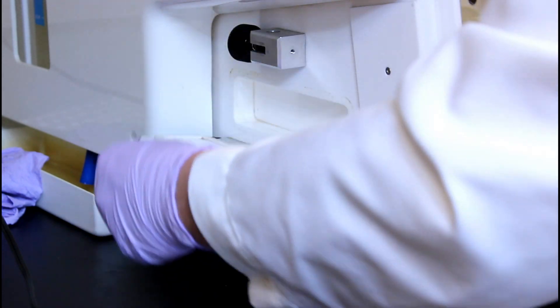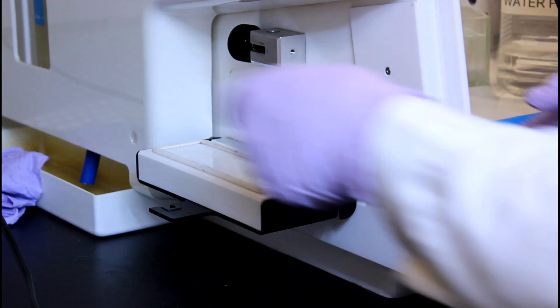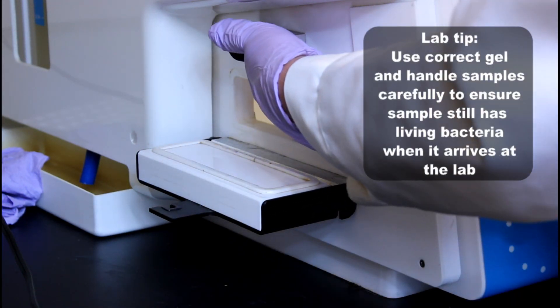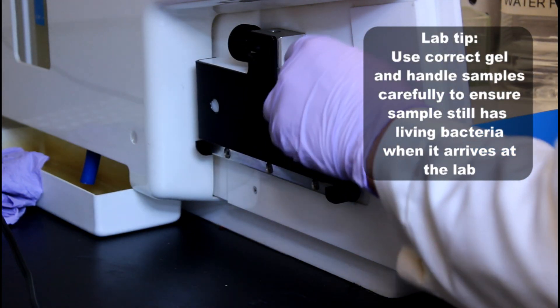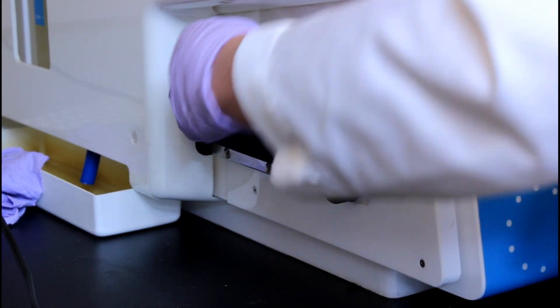Here's how we process anaerobic cultures in the lab. Note the number of steps involved in keeping the samples anaerobic. Make sure when you're packaging your samples to put them in the correct gel and handle them very carefully so that your sample still has living bacteria in it when it arrives at the lab.